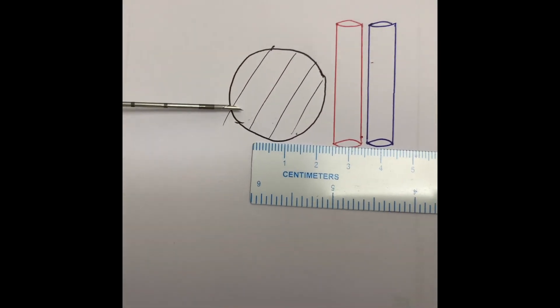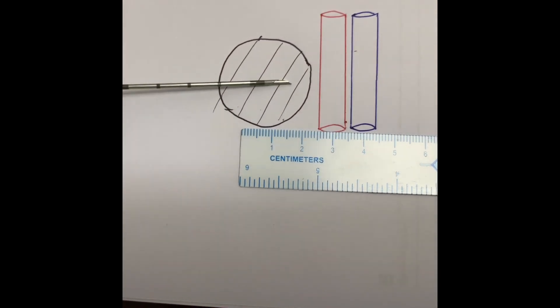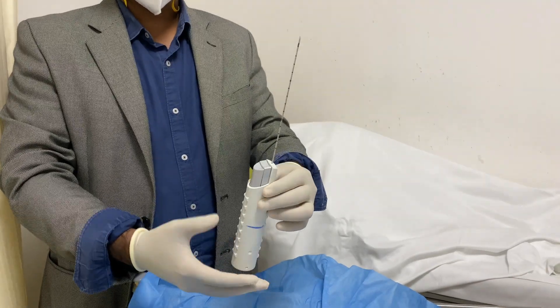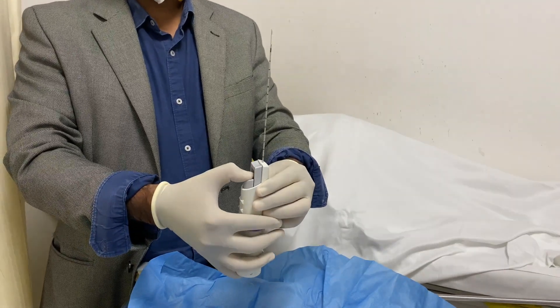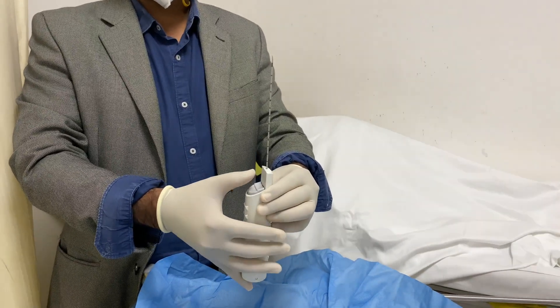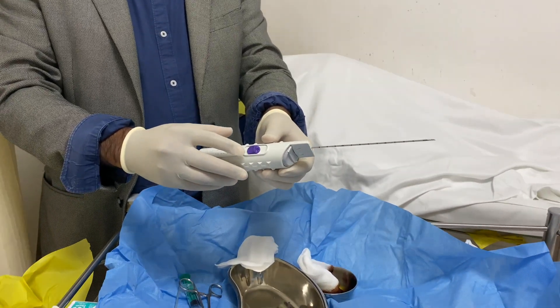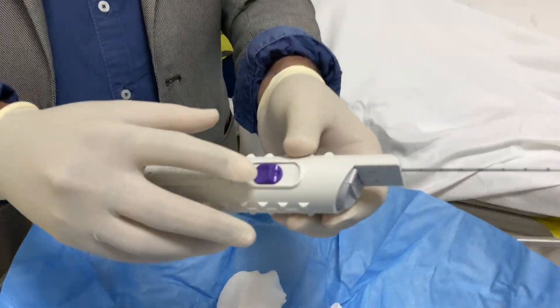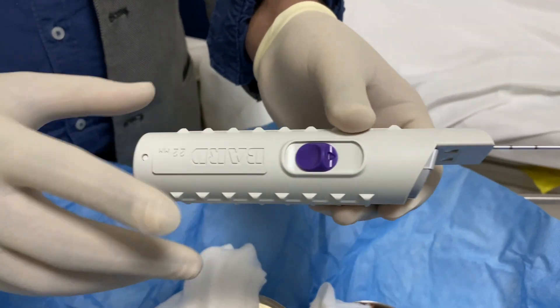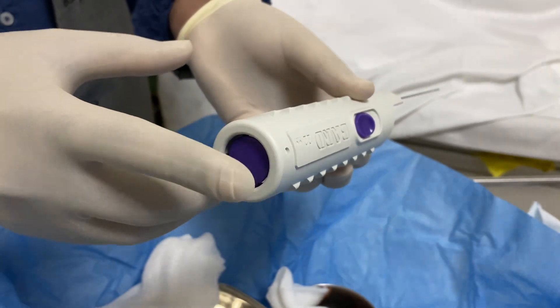This is how the gun is charged: the top slide is locked back, then the bottom slide is also locked back, and the gun is energized and ready to fire. There are two firing buttons — one on the side and one at the bottom — and we can push either of them to fire.